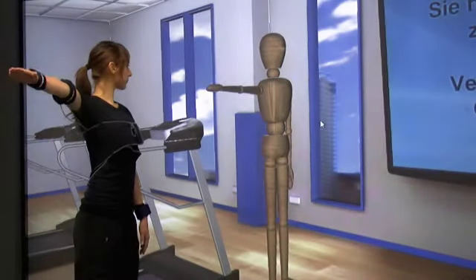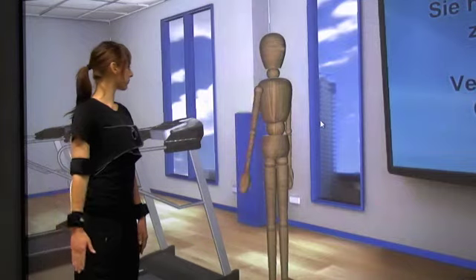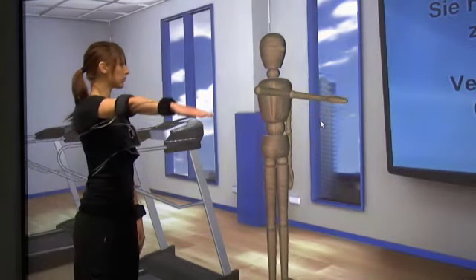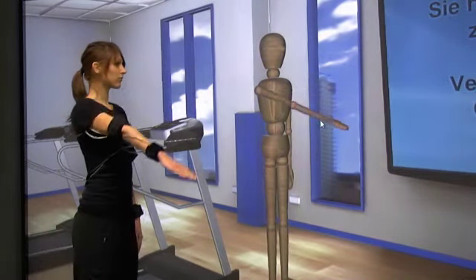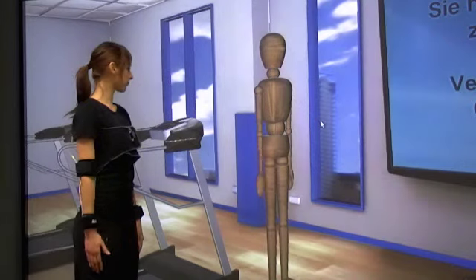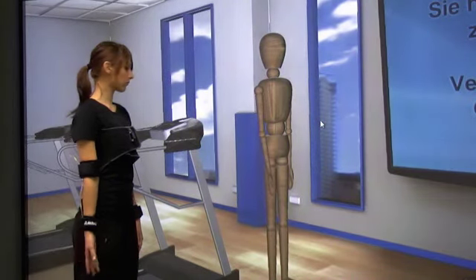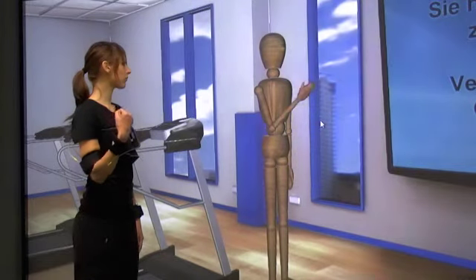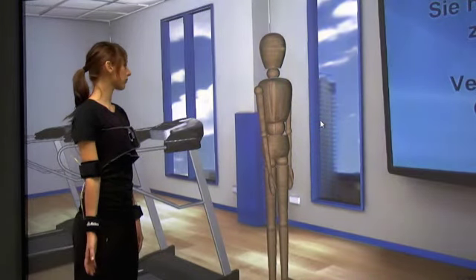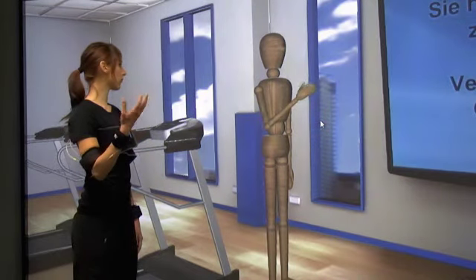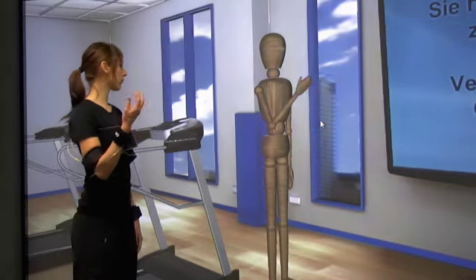When calibrated, the PAMAP system can accurately capture the body pose. This is done by comparing the IMU measurements with predictions from a biomechanical model. The model consists of rigid bodies and restricted joints. The fusion of the measurements and the model is done with statistical sensor fusion, which produces joint angles and kinematics to describe the pose and motion of the monitored parts of the body.